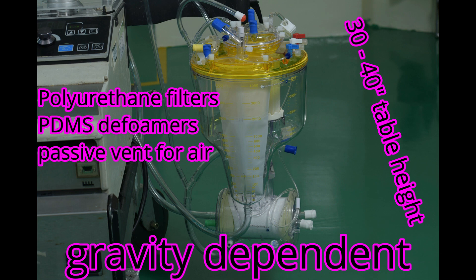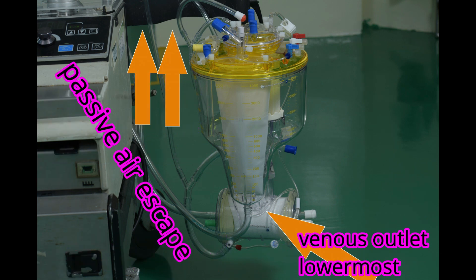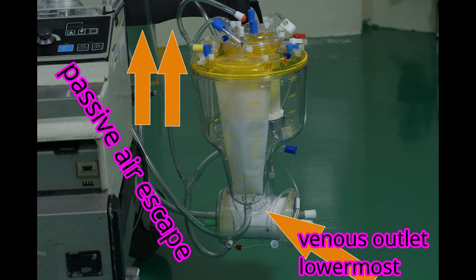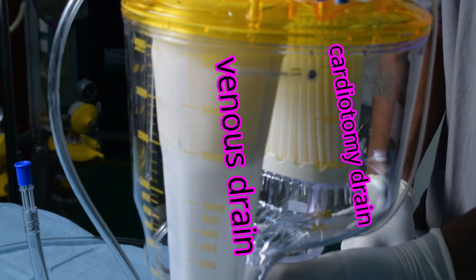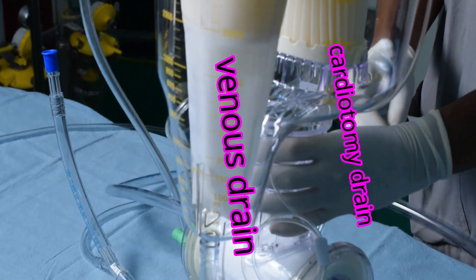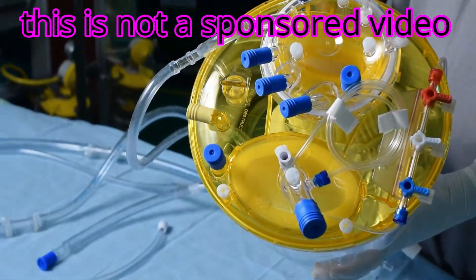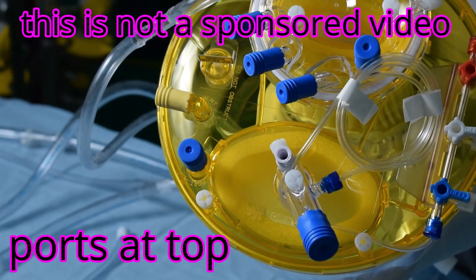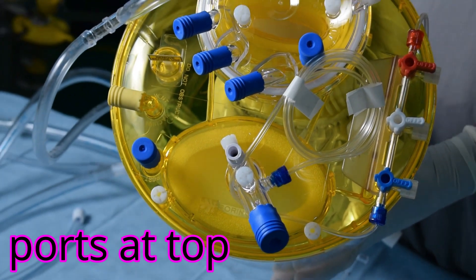Apart from this, the reservoir facilitates the venous bubble trap, provides a convenient place to add drugs, fluids, and blood to the system, and also allows sampling of blood for various reasons. The reservoir also adds storage capacity to the heart-lung system, to be dispensed to the patient by the roller pump as and when needed.